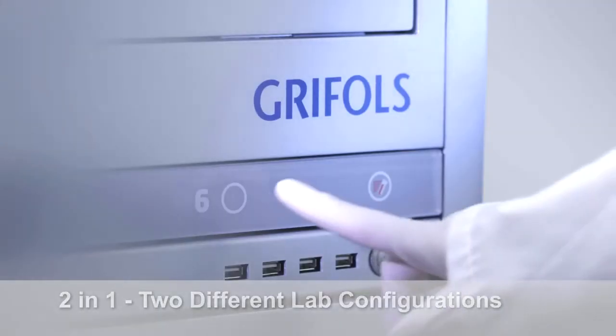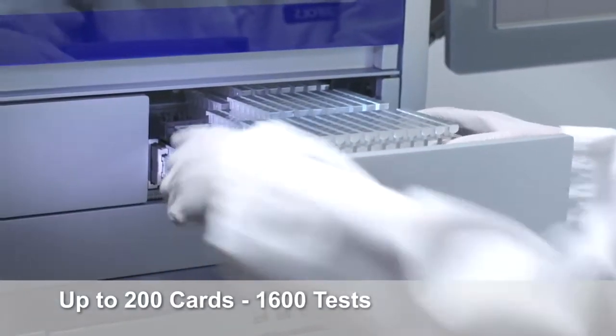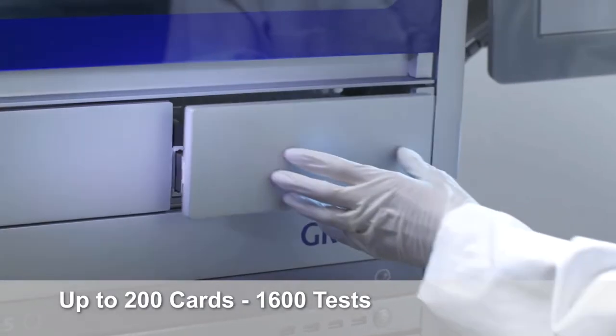The Erytra eFlexis, despite its small size, has an enormous capacity, allowing you to store up to 1,600 tests or 200 DG gel cards.